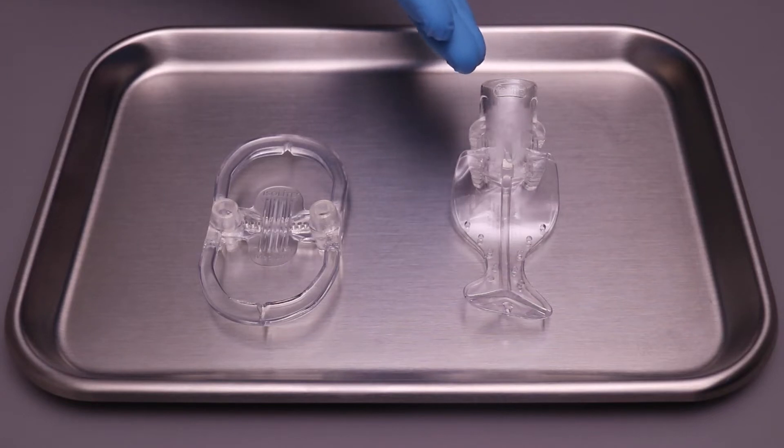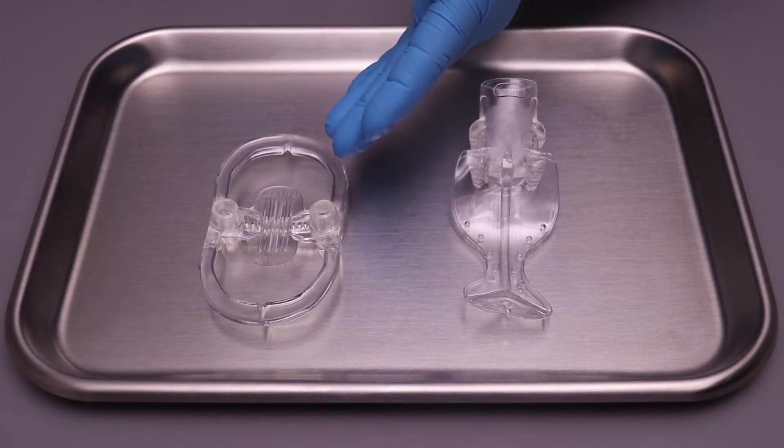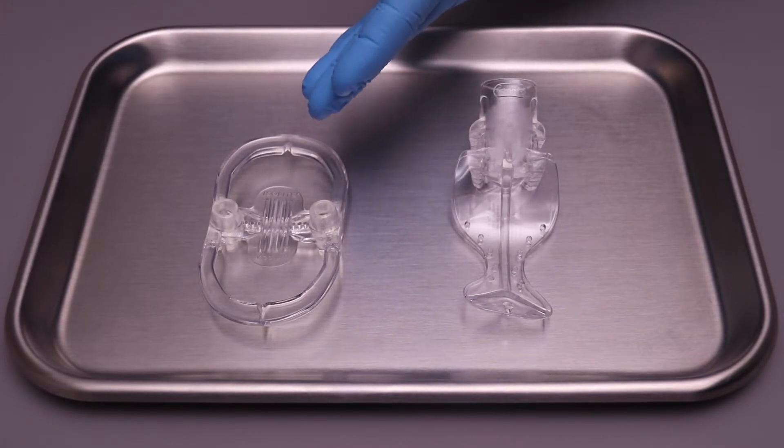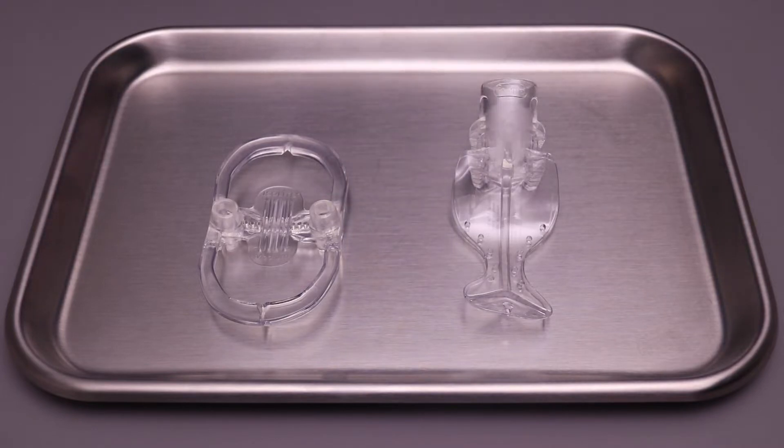The system is designed to work with both the posterior and anterior mouthpieces. Posterior being perfect for quadrant-based dentistry, and the anterior for procedures requiring bite-to-bite access in the anterior of the mouth.